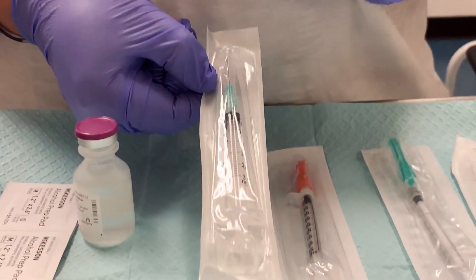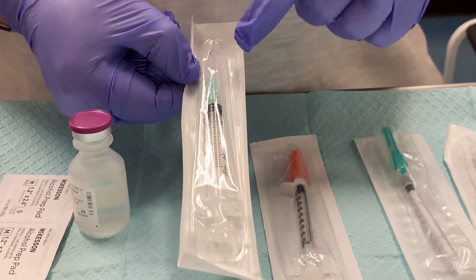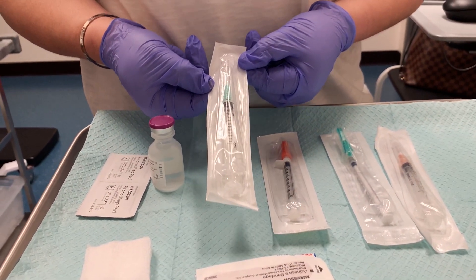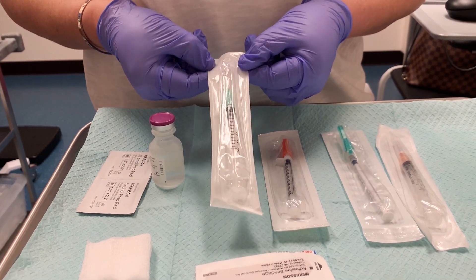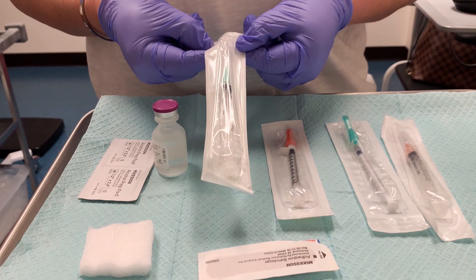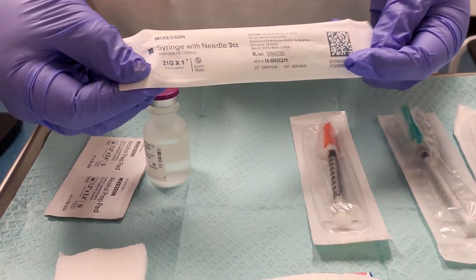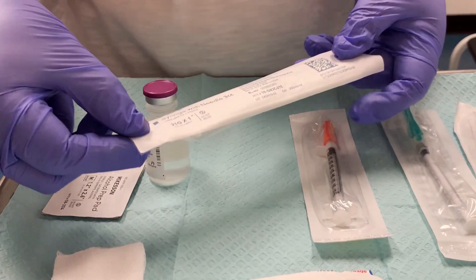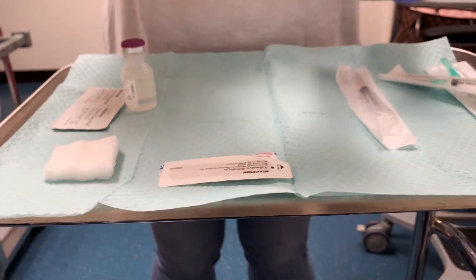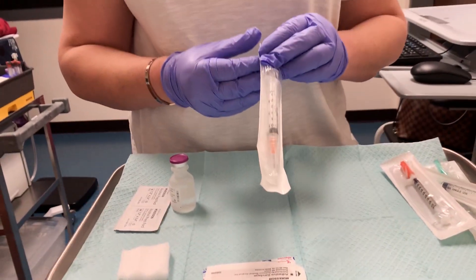The last syringe we have is also a 3cc syringe, but the needle is quite a bit bigger — this is used for intramuscular injections. The needle is a one-inch needle; intramuscular injections usually use one to one-and-a-half inch, sometimes up to two-inch needles. This one is a 21-gauge by one-inch needle. I'm going to move these to the side and take out my sub-Q needle.